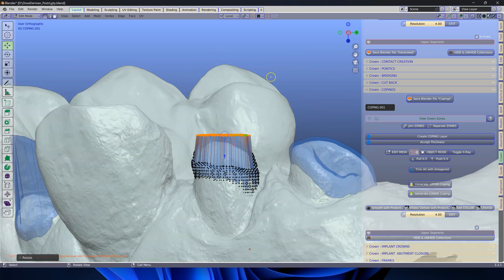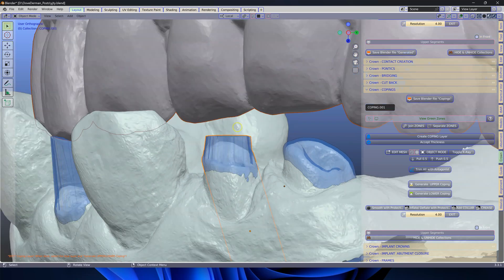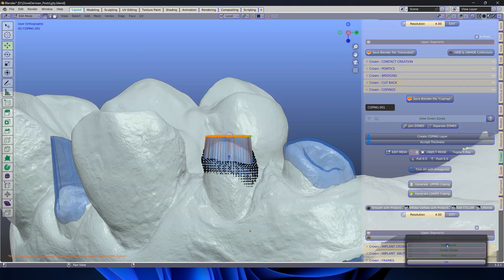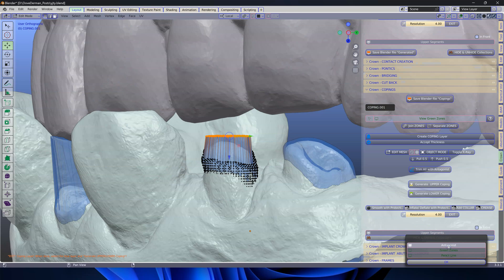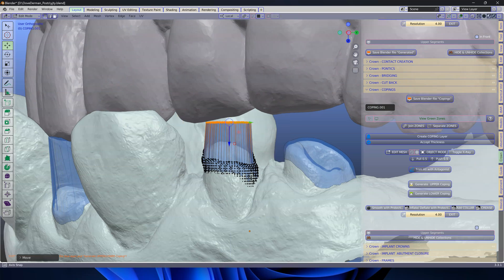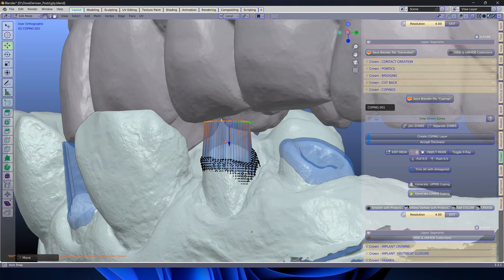Where's my antagonist? Alt H. So it's better to use these buttons over here, because then you can hide and unhide the antagonist very, very easily. If you use the H key, it can make it a little bit more tricky and more difficult.